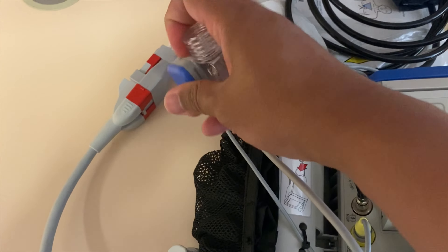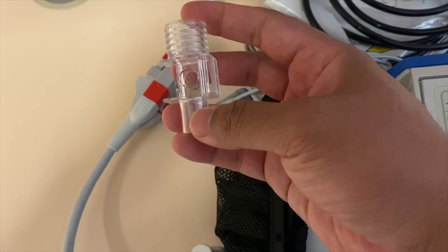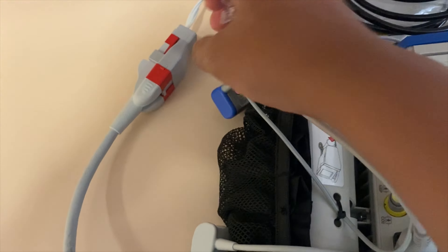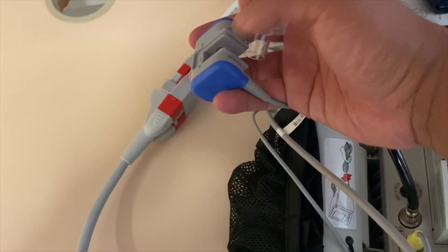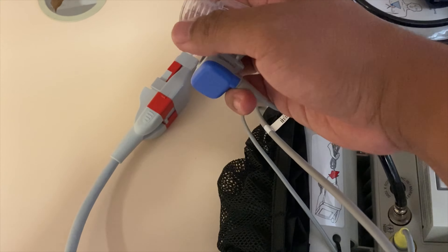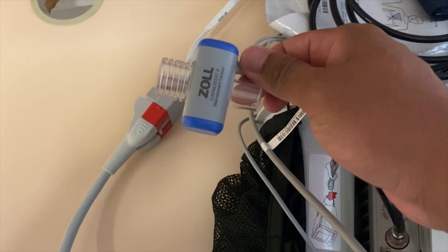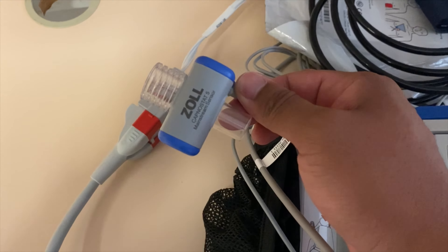It's very easy. All you have to do is to slide this plastic sleeve that would come in a closed, clean package. All you have to do is to slide that in here, and you can attach this to your Ambu bag or to your ET or trach tubes.